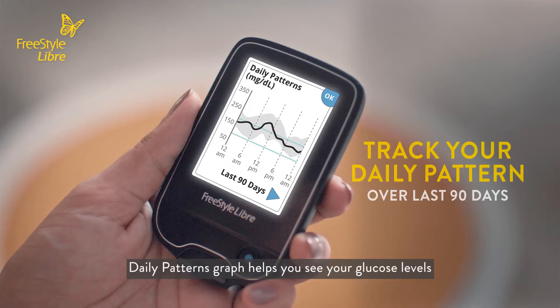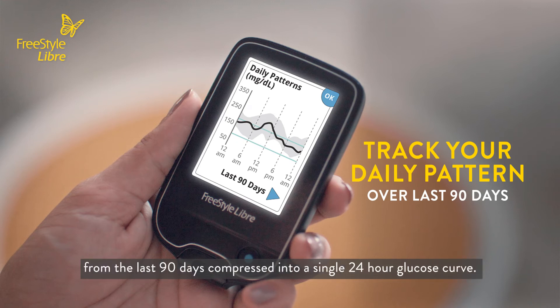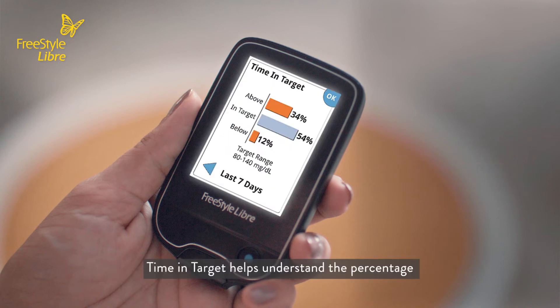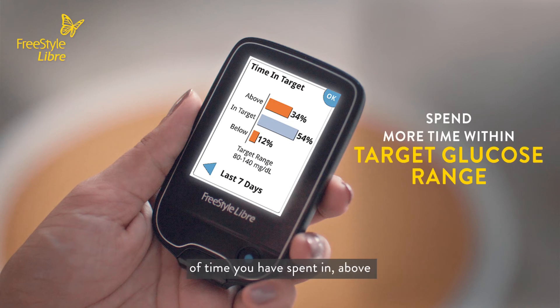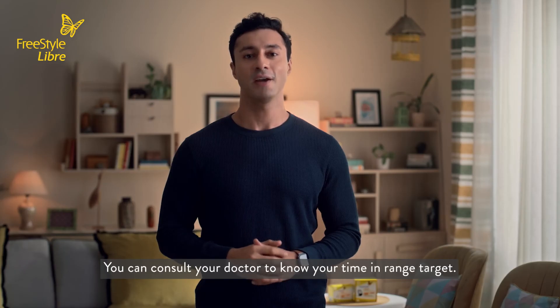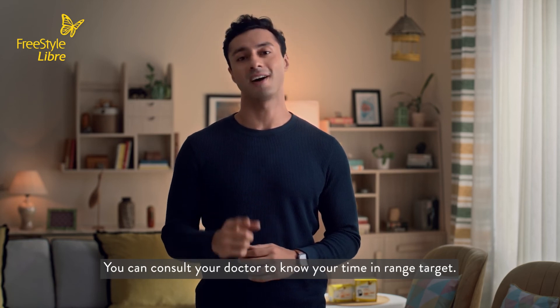Daily Patterns Graph helps you see your glucose levels from the last 90 days, compressed into a single 24-hour glucose curve. Time in Target helps you understand the percentage of time you have spent in, above, or below the target range of your glucose levels. You can consult your doctor to know your time in target range.